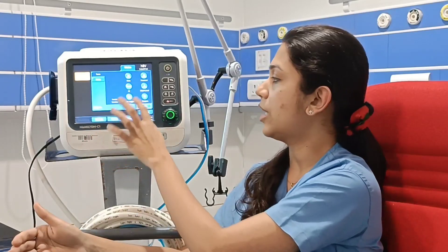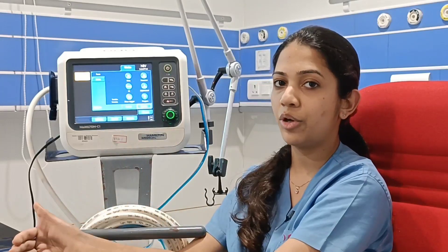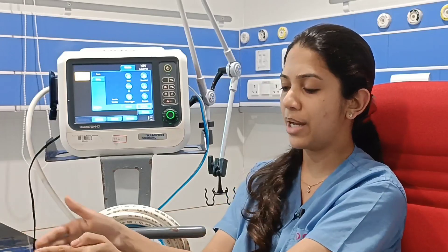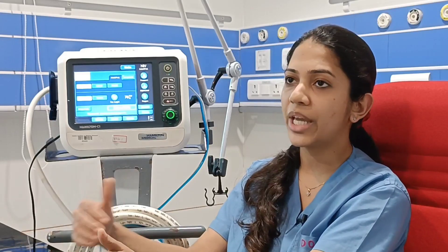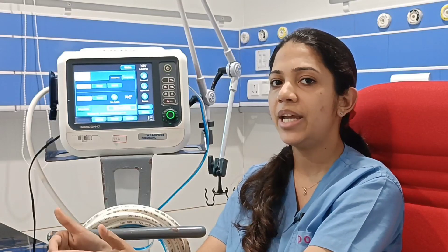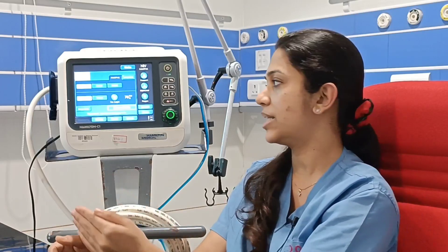FIO2 can be set from 21 to 100. For flow trigger, immediately after intubation we keep it around 5, and when planning to wean the patient, we reduce the flow trigger. We also set the I:E ratio — we keep a longer expiratory time than inspiratory time, and set the respiratory rate frequency.